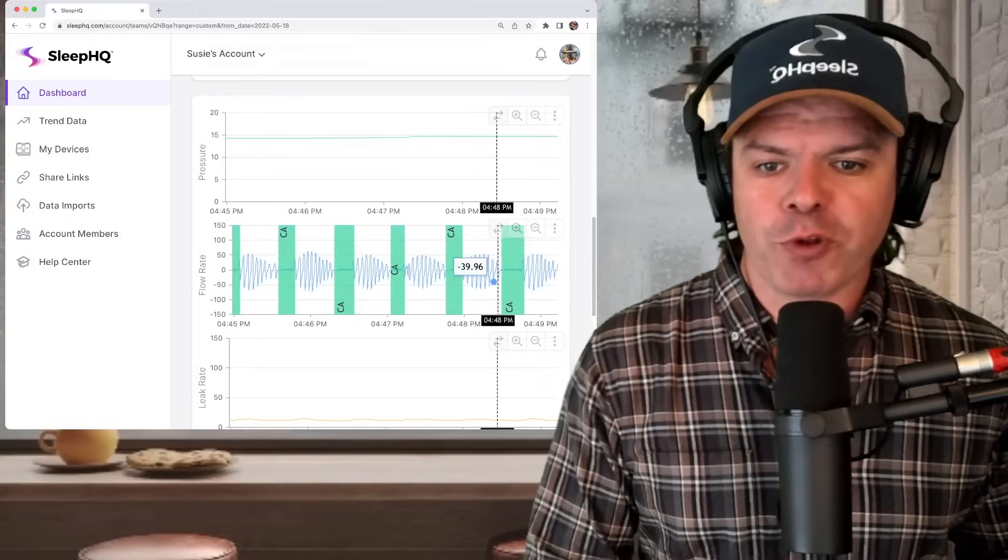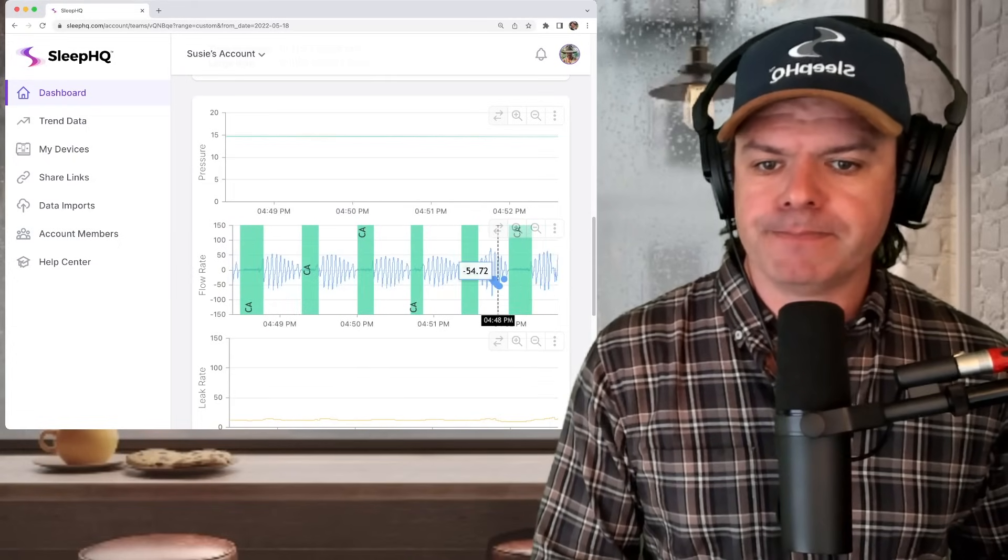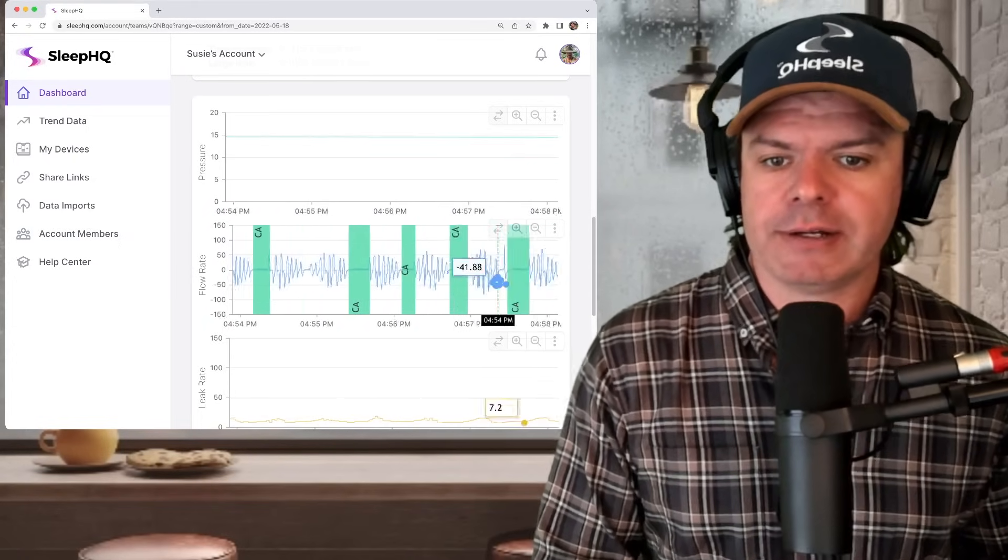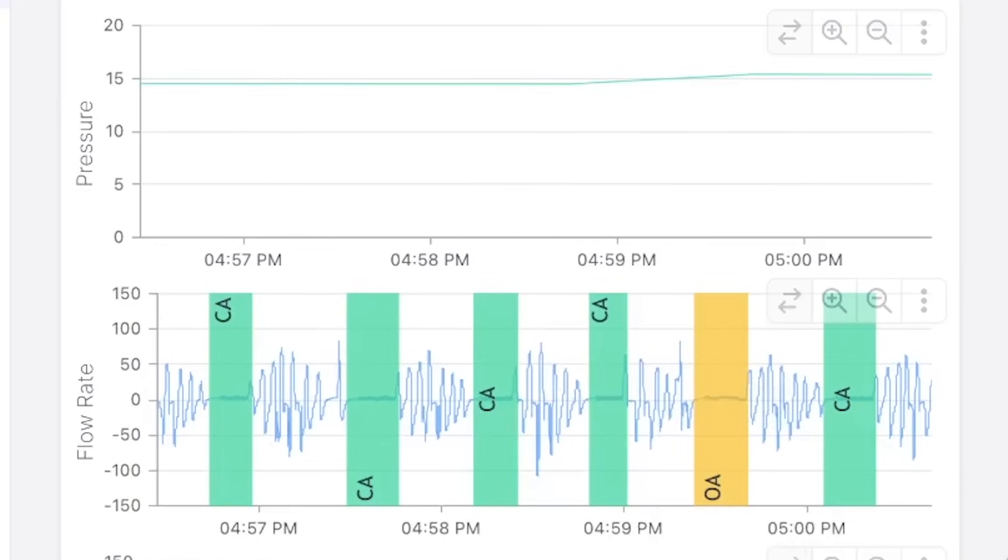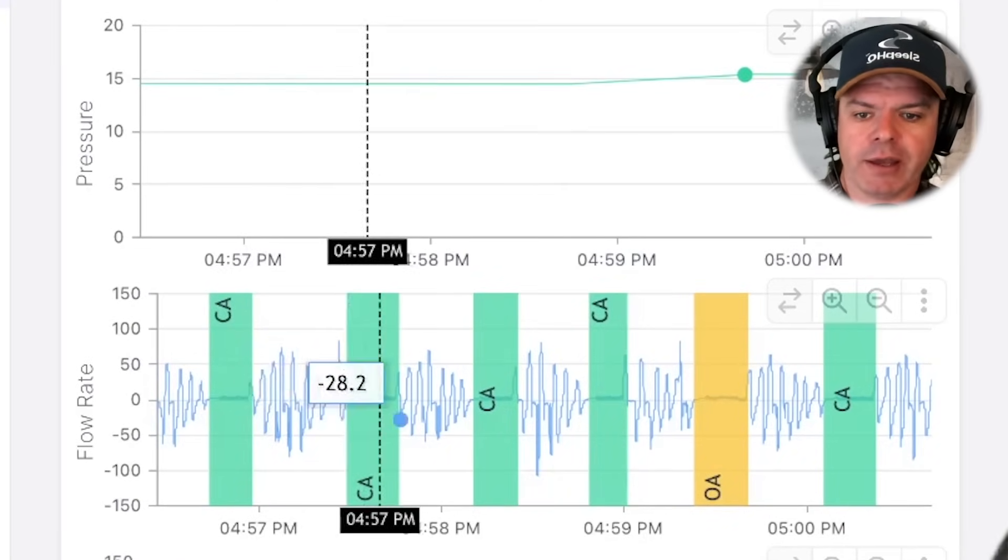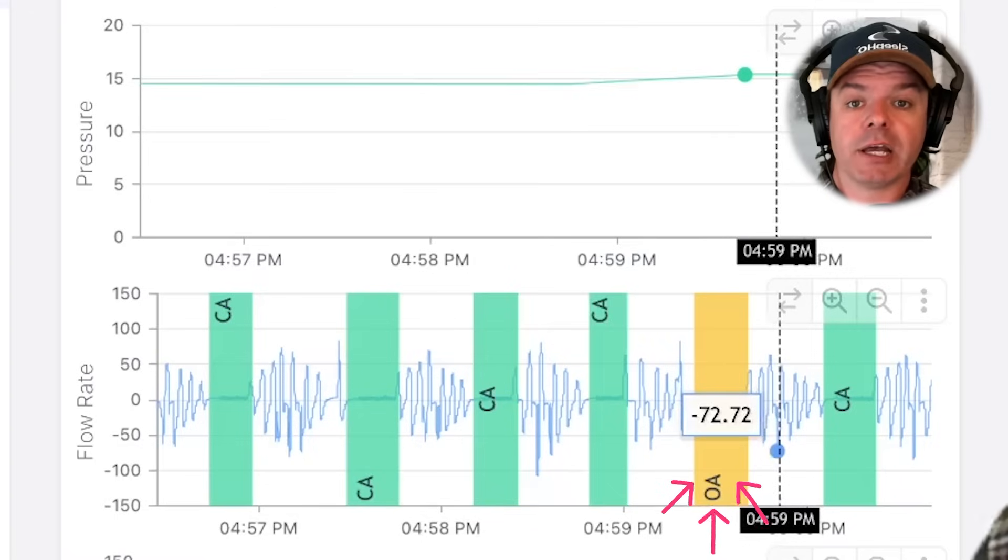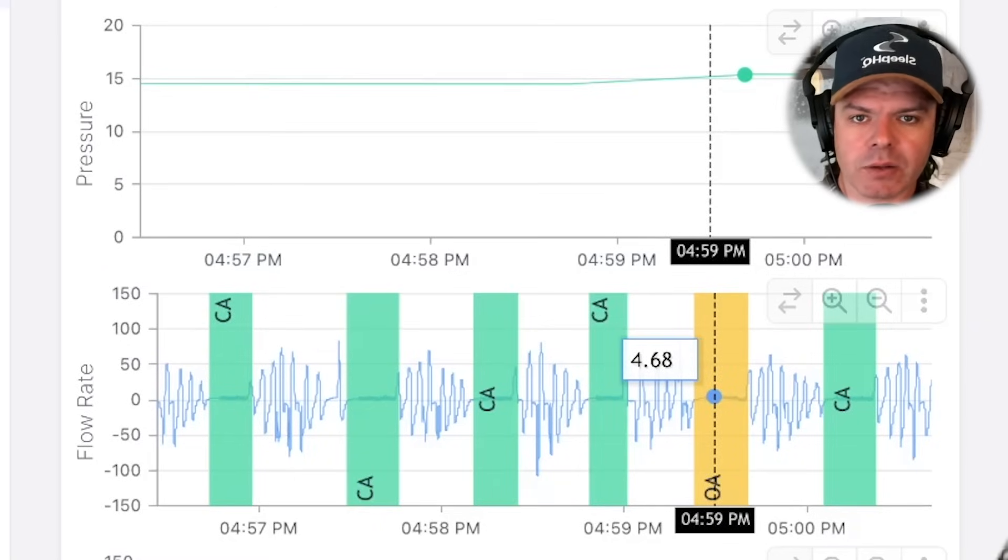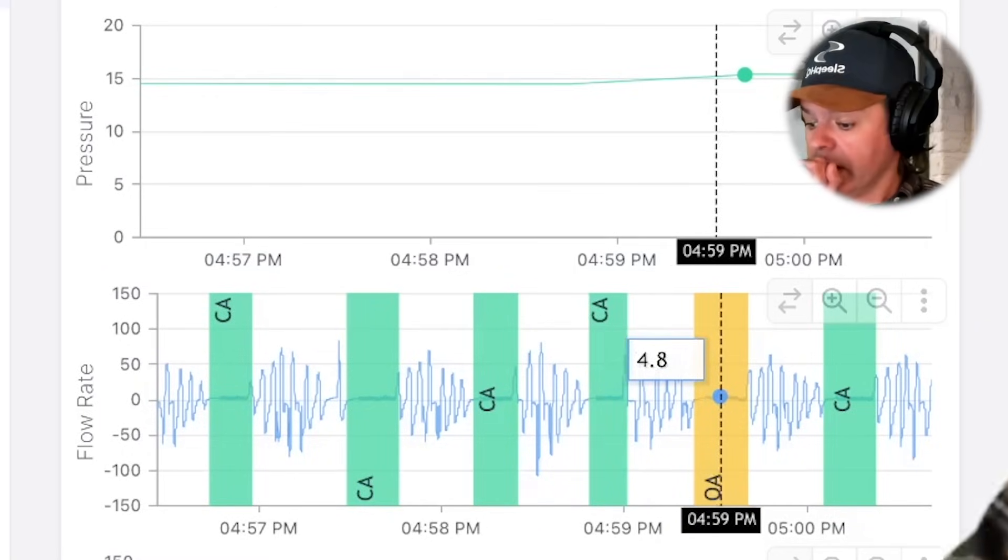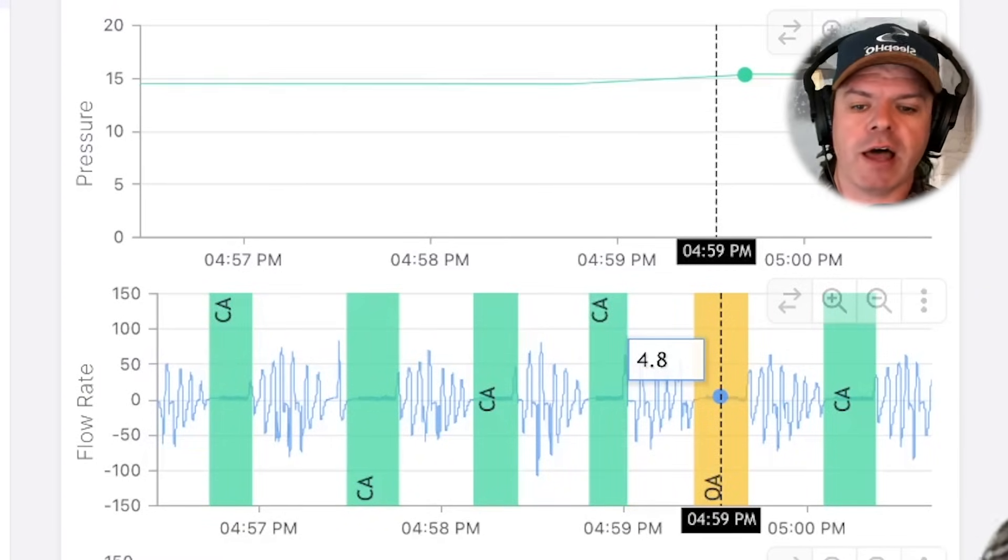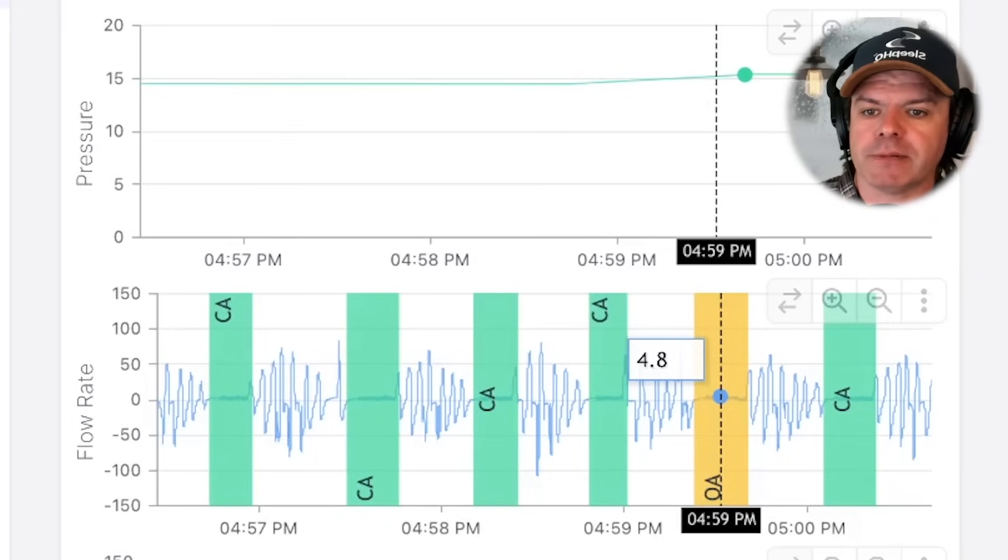Let's scroll forward through the night just by clicking the right arrow on the keyboard. There's one more thing I'd like to show you. There's lots to talk about in this video. And right here, something stands out, doesn't it? So we have all these green clear airway flags, and then all of a sudden, out of nowhere, we have this OA, obstructive apnea flag, this yellow one right here. But it looks the same as the other ones. And that's because it is. This here is what we call, excuse me, I've got a frog in my throat, a false flag. It's not an obstructive apnea. It's a clear airway event.